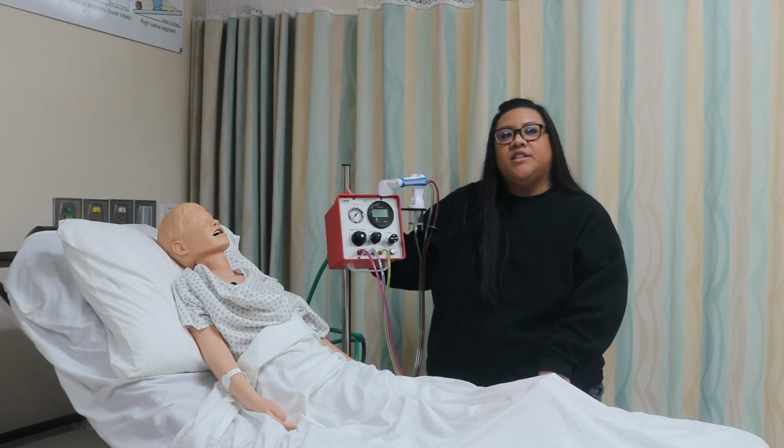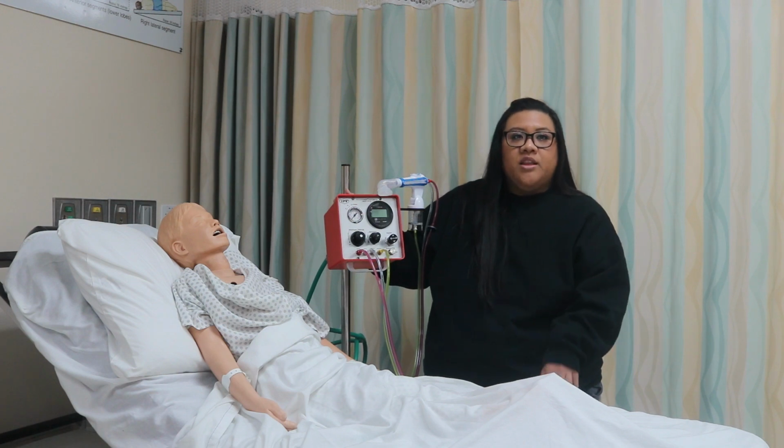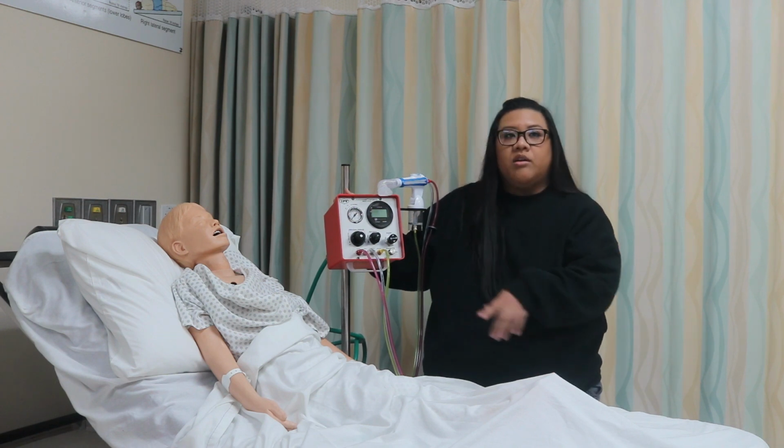So I'm going to go over the initial settings on the device. It uses a pneumatic device to deliver a rapid series of pressurized gas minibursts at a rate of 200 to 300 cycles per minute to the airway. The patient can still inhale and exhale through the device as the oscillating airway pressure is applied. It actually has 4 operator controls.